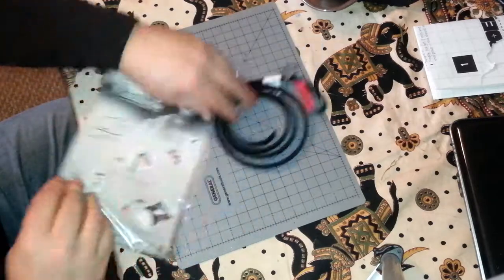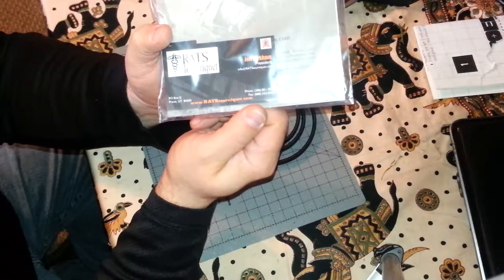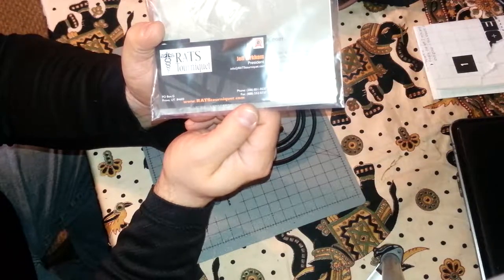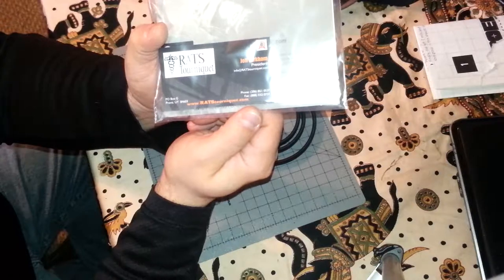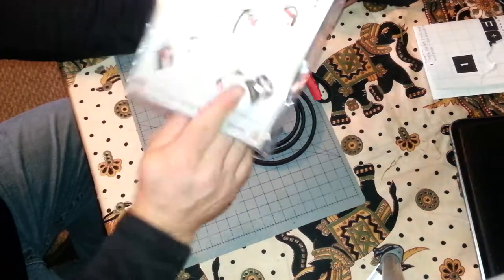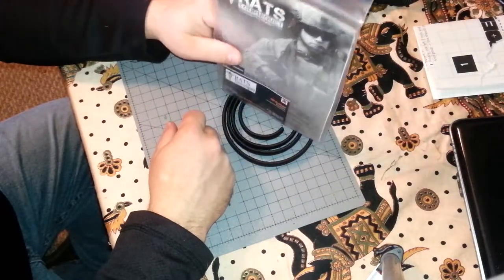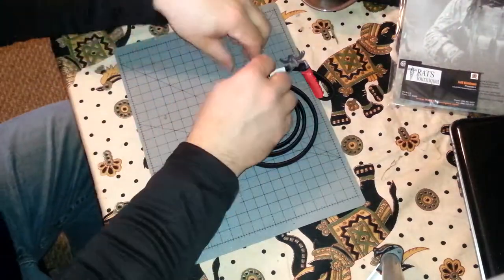This is how it comes — in this packaging. You get a nice little card with contact information. Go to ratstourniquet.com. If you don't know how to spell tourniquet: R-A-T-S-T-O-U-R-N-I-Q-U-E-T dot com. Just type 'ratstourn' and it'll autocomplete. Click on it, go to their website.